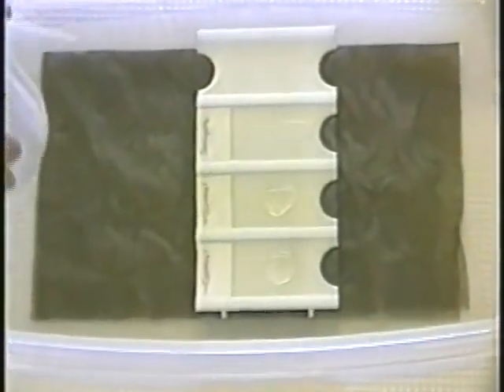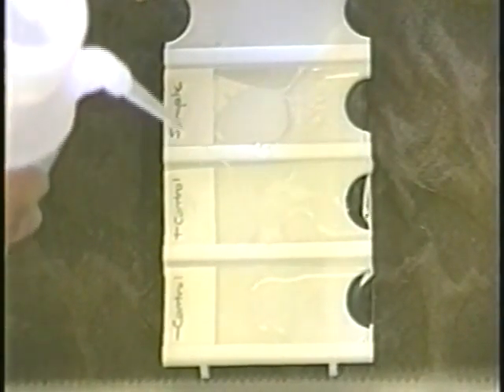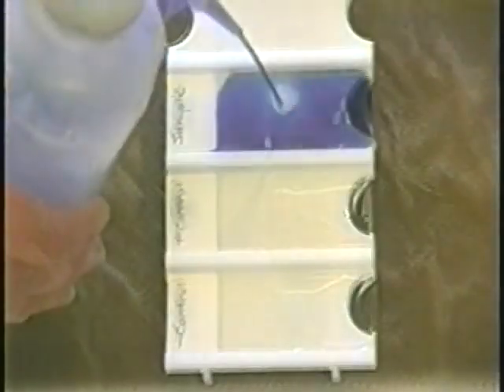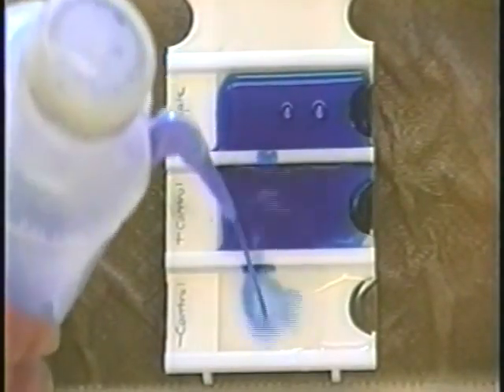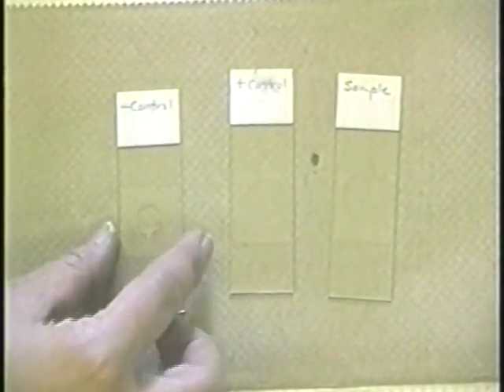Gently rinse the antibody off the slide by squirting phosphate-buffered saline onto the slide above the smear and letting it run down over the smear. Then flood the slide with PBS for at least 2 minutes. Briefly counterstain the smear with Evans Blue, rinse again with PBS, and air dry. Immediately add buffered glycerol mounting fluid, apply a cover slip, and examine using a microscope equipped for fluorescence microscopy.